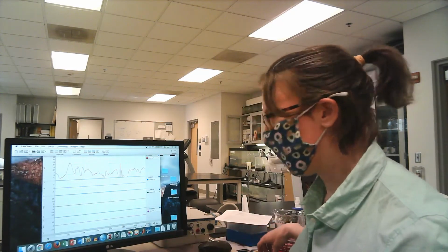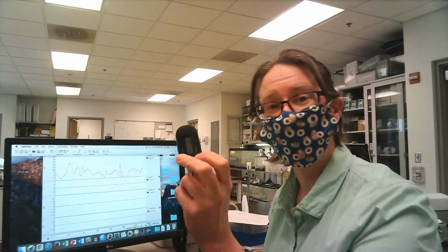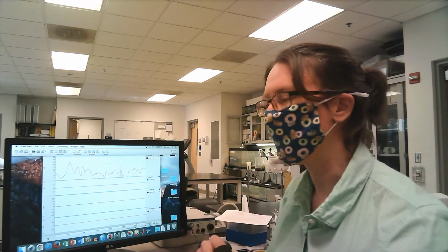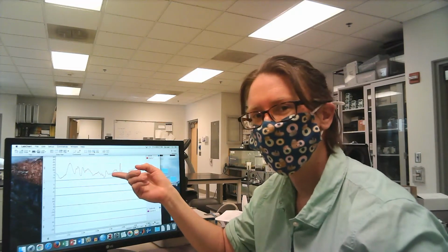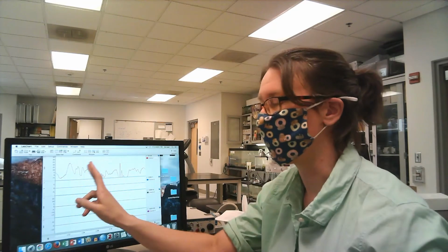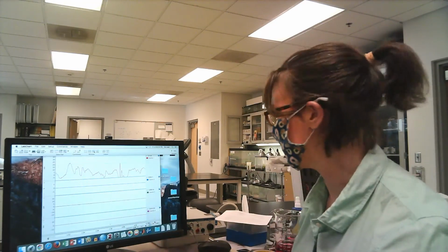I've already showed you one tool that we can use to measure heart rate, right? So that was the finger pulse oximeter. So that could give you one index of heart rate. But if you want to study coordinated changes in breathing and heart rate, it would be very convenient if you could also get a measurement of your heart rate on LabChart that would correspond with your measurements and changes to breathing rates.